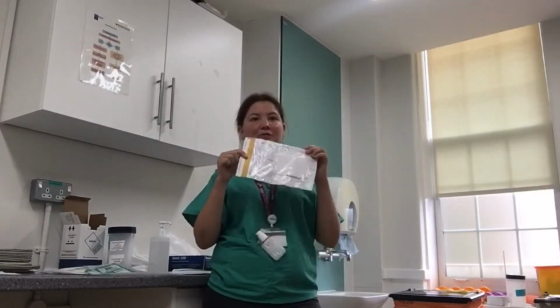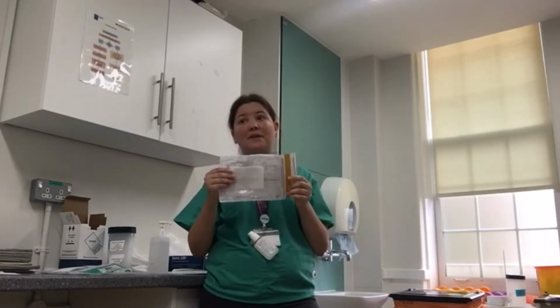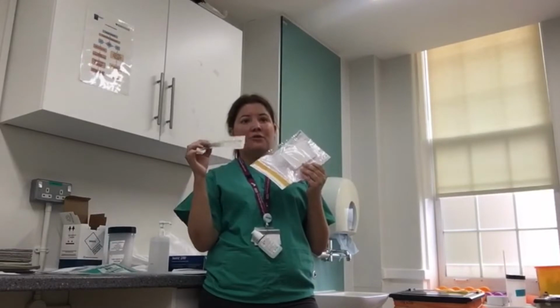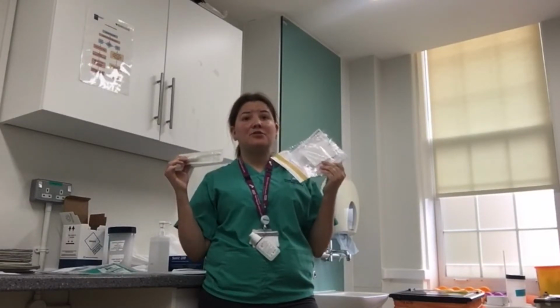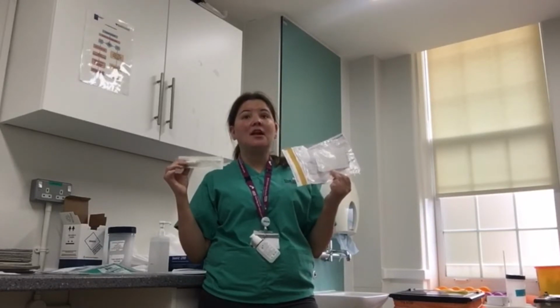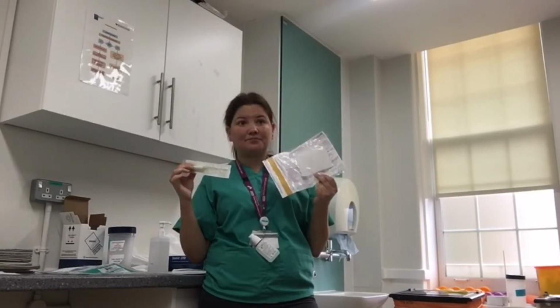Fill in the pathology form and the sample bottle. The first step is to complete the pathology form and the sample bottle. This is very important in order to ensure that the results are reported. Failure to correctly complete all fields might result in the sample not being processed.